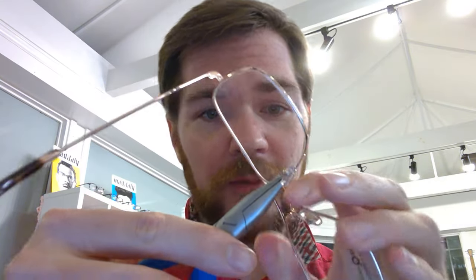You do want to be super careful. I see it all the time - I've seen opticians do it, I've done it myself. These regular pliers are sitting around somewhere in everyone's toolbox. The problem is the specialty pliers have a cutout that fits down over this little section right here so you don't have to worry about slipping off. With regular pliers you have to grab the arm itself and it doesn't fit down over the pad - it is super easy to slip off and scratch right across that lens, right where you see out of them. Every time, trust me.